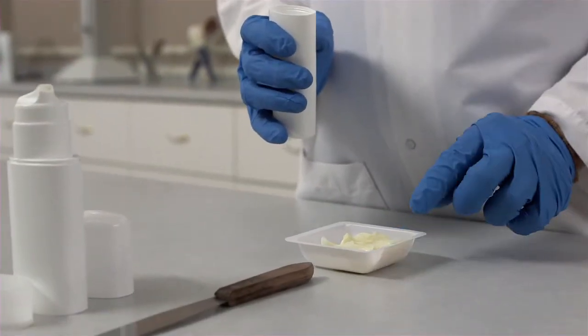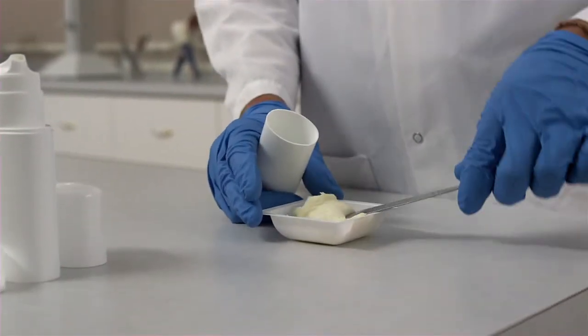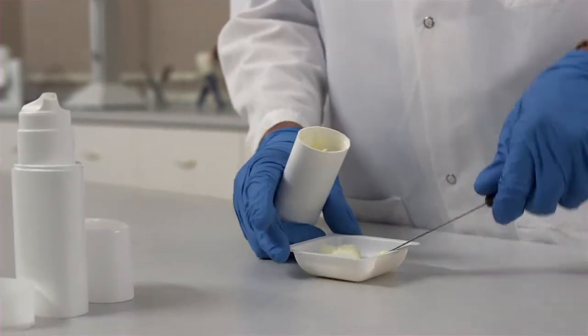To fill this device, we'll simply measure out the cream you're going to be using, have a spatula, and we'll fill the cream base into the dispenser from the bottom.